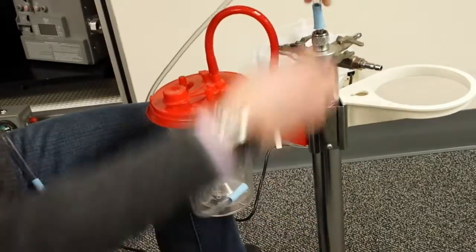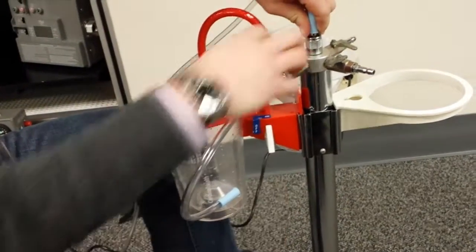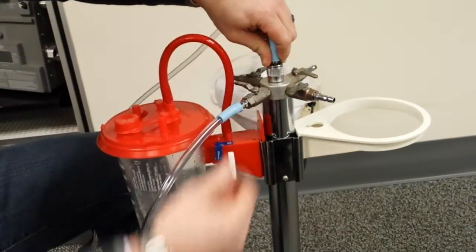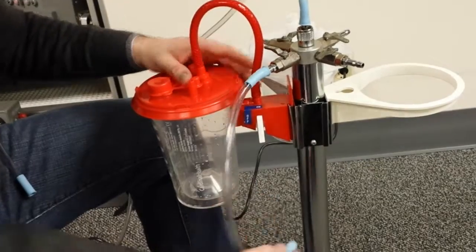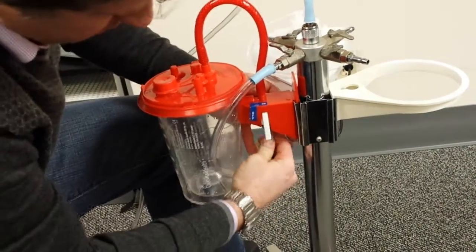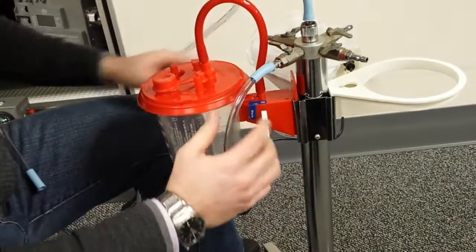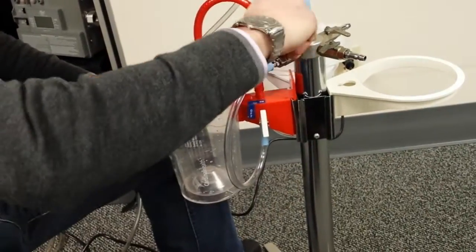And I'm using another pump, but either way, your vacuum source is going to come in through the top. And this is an on-off lever here. But you want to use, if you're using the Cardinal system, you want to use the system that they've designed. So you're going to want to put the suction into the bottom here, just like they designed. And then you're going to leave this open because you're now shutting on and turning off right up here.